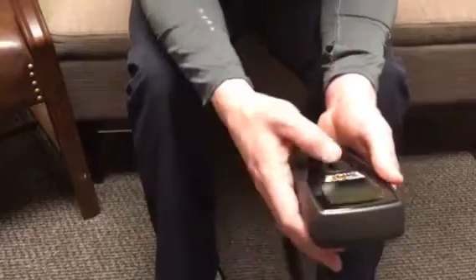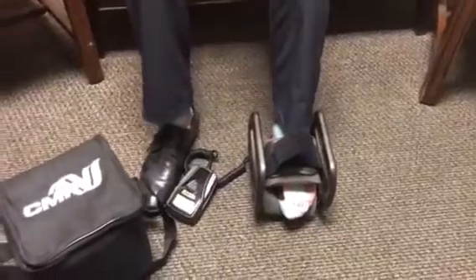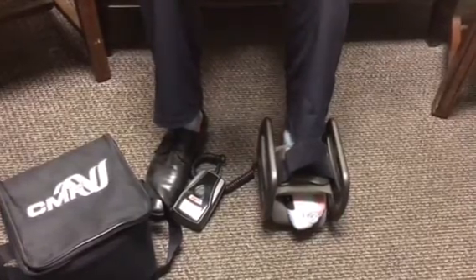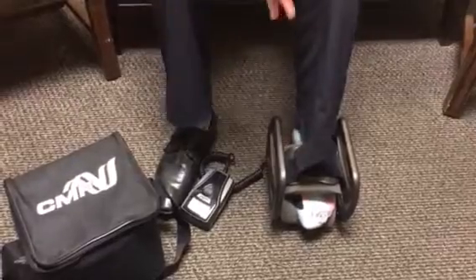All you would do to start your treatment session is hold down the button for three seconds. After you hold it down for three seconds, you'll hear an audible beep and then an hourglass will show up on the module. At that time you can set the module down, put it in your pocket, or use the belt holder clip, and your treatment session will occur. You won't feel any vibration and you won't feel any pain — it's very rare that anyone feels vibration or pain while utilizing the OL-1000.